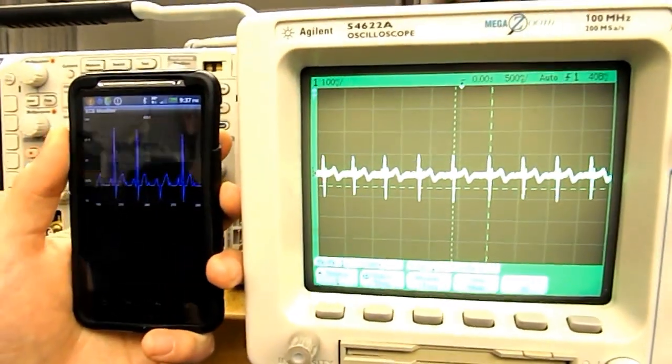And now we can compare signals with the oscilloscope and the Android app.